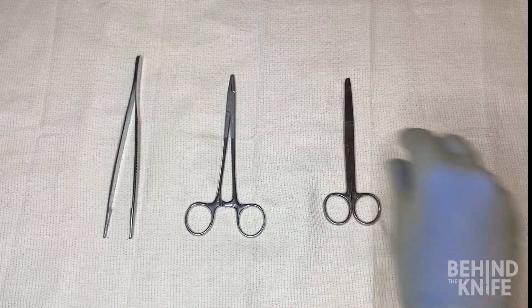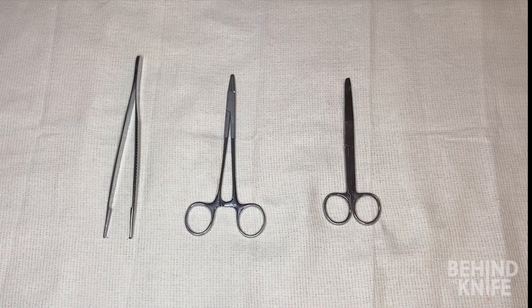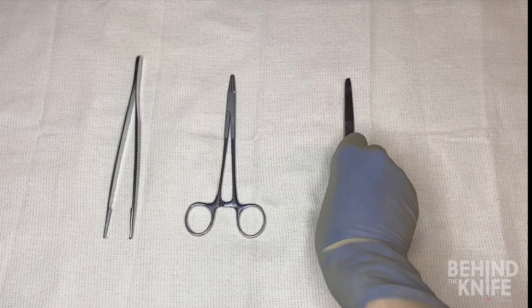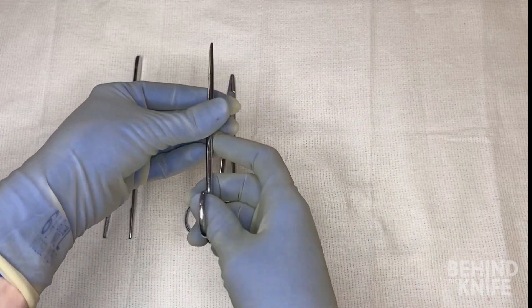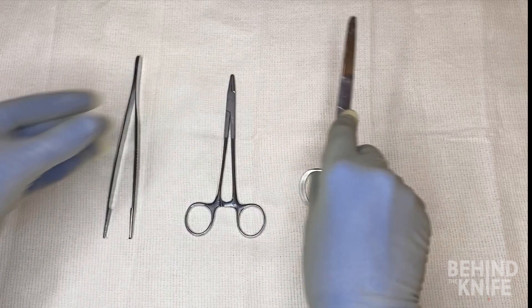The last instrument I'll encourage you to use are the people and patient around you. While every surgeon likes to think they have steady or unwavering hands, the truth is a lot of us have a small shake or tremor. Use what's around you to help stabilize your hands, or even use two hands when you're able to, to create greater stability when executing these skills.